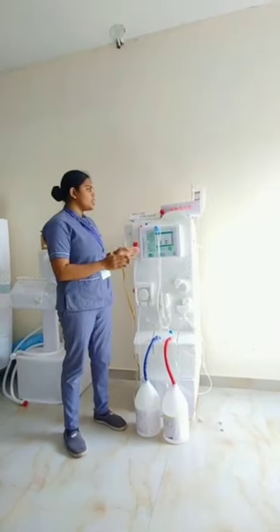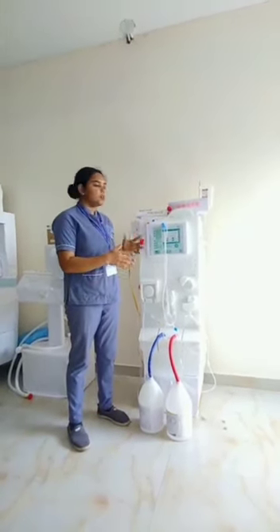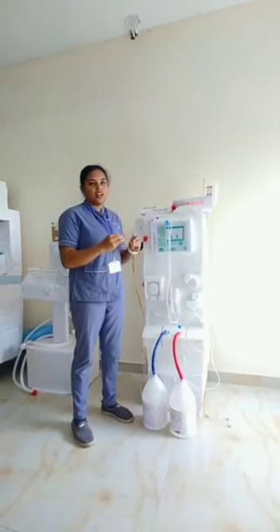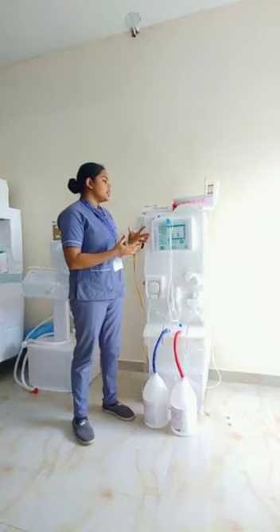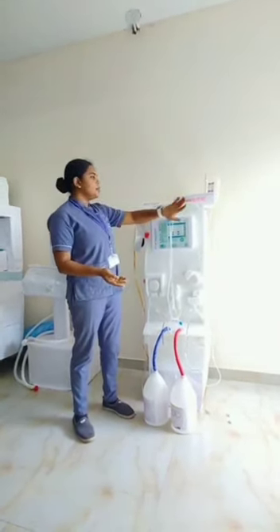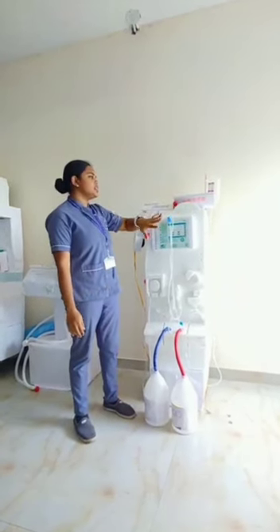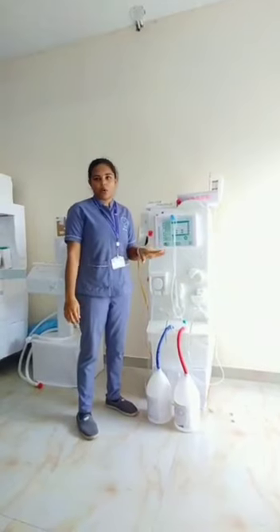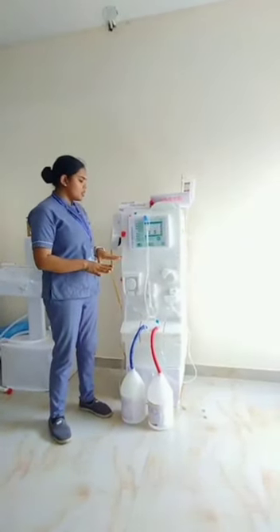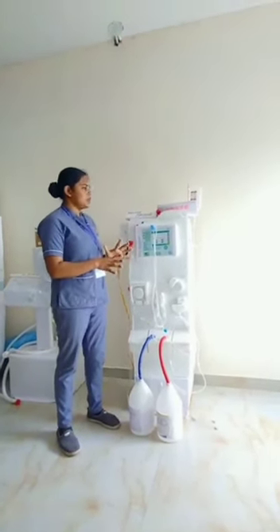All of this is monitored by the dialysis technician, and the entire process is monitored on the monitor. If there is any deviation in temperature or pressure, that will trigger the alarm. The alarm will blink when there is any deviation or any problem during the dialysis process. This is the actual working and the components involved in the dialysis machine. Thank you.